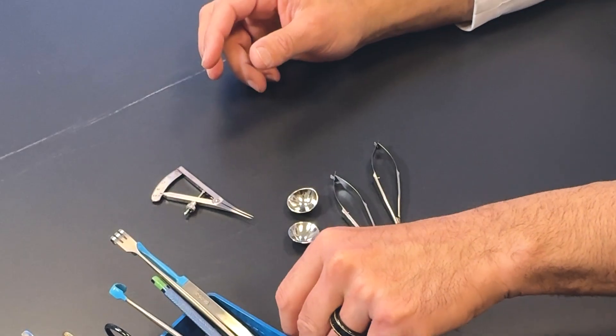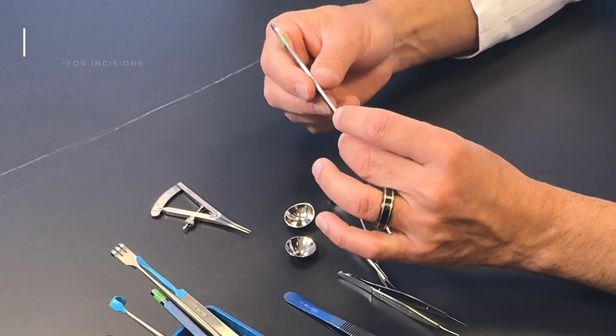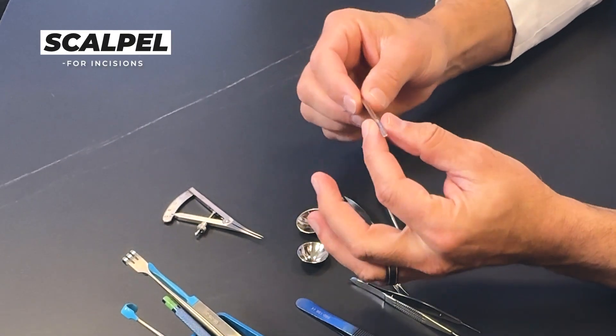What does that mean when I start? Well, it means getting the patient numb, comfortable, and then performing the procedure. I make my incisions using a scalpel, which I don't have the blade on top of this, but it's a very fine blade that I use to make my incision around the pre-marked areas or within the pre-marked areas of the eyelid skin.